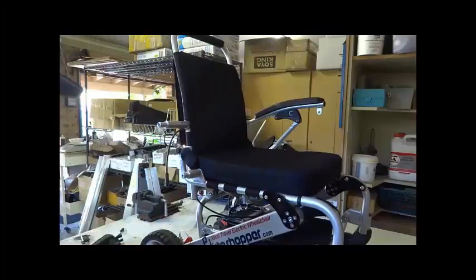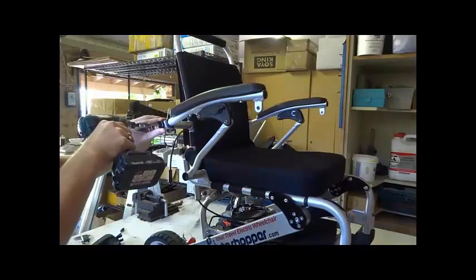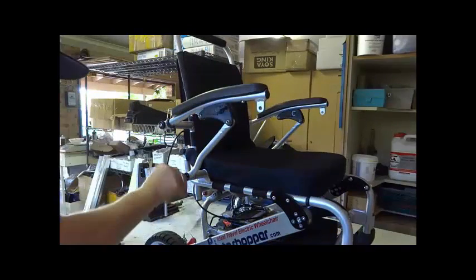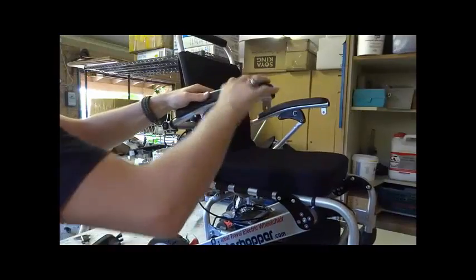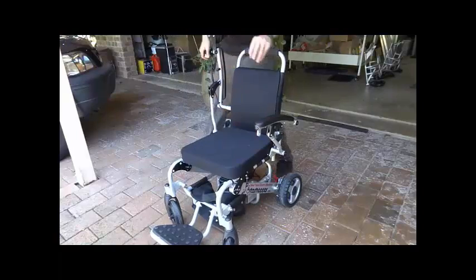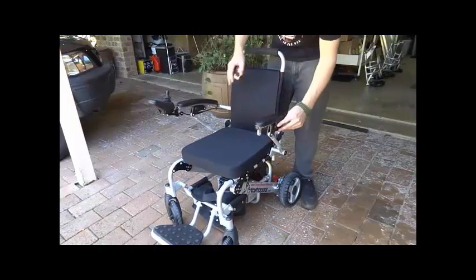For those who need more space between the armrests, we also include a free width expansion kit which can be installed by anyone slightly technical, and which increases the width between the armrests by 10cm in total, bringing the width to around 55cm for our Portashopper 3, Portashopper Grand and Portashopper Super Grand models.